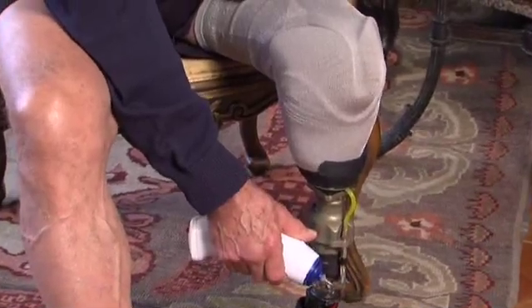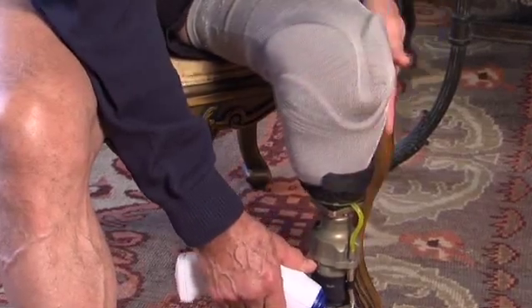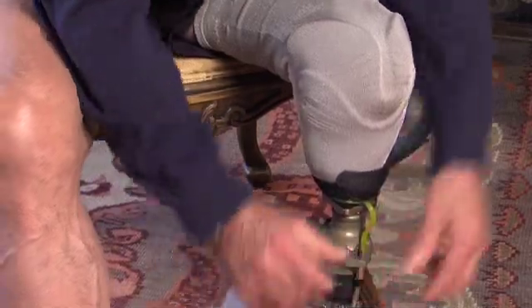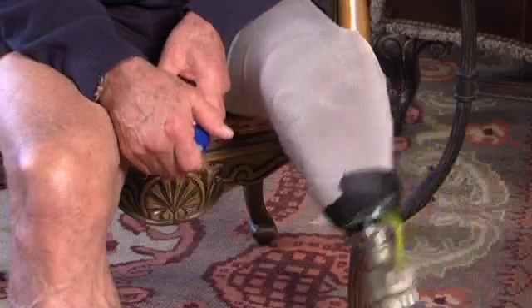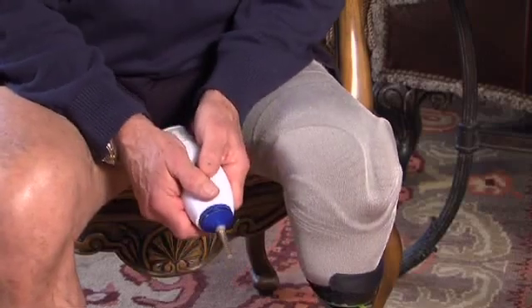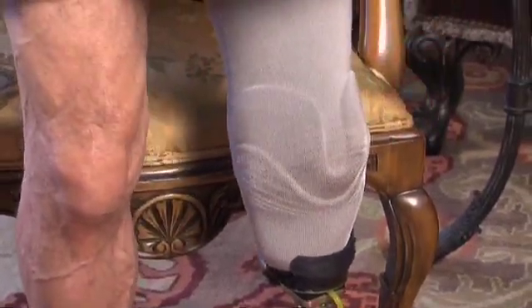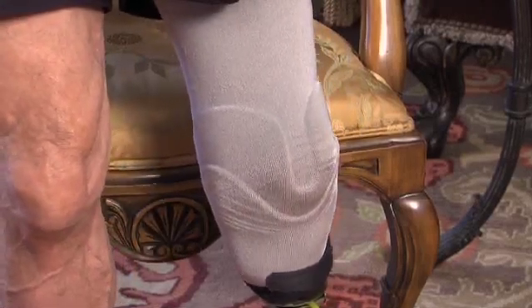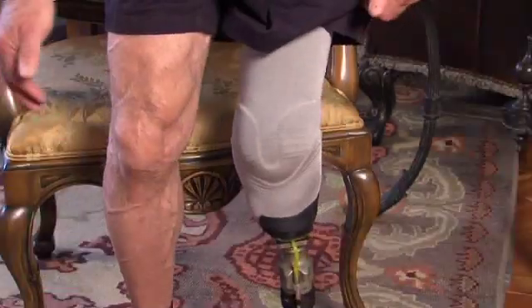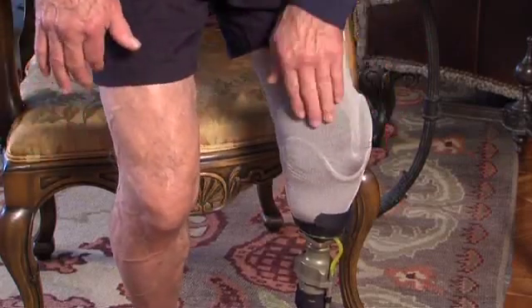What I use is a little handheld vacuum pump I hook in here. You'll see as I start to draw vacuum, you'll see the outline of the socket and all of this stuff starts to get pulled in. And now it's very easy to bend my leg — it sits there very nicely, yet I'm in very good control over it. Sitting at 90 degrees or beyond is extremely comfortable. As I try to pull away from my socket posteriorly, this closes down and it's hanging on to me, actually increasing my length by a couple inches at least, giving me much better leverage.